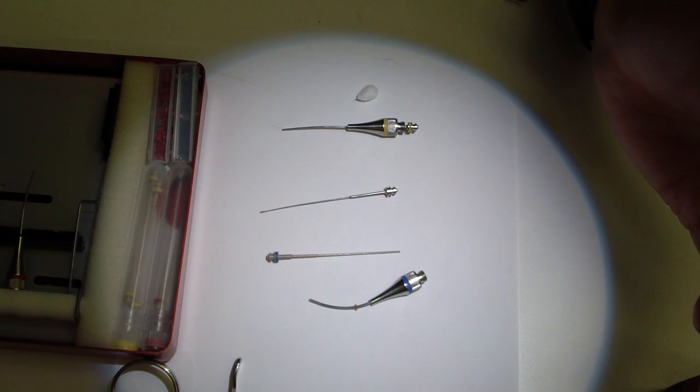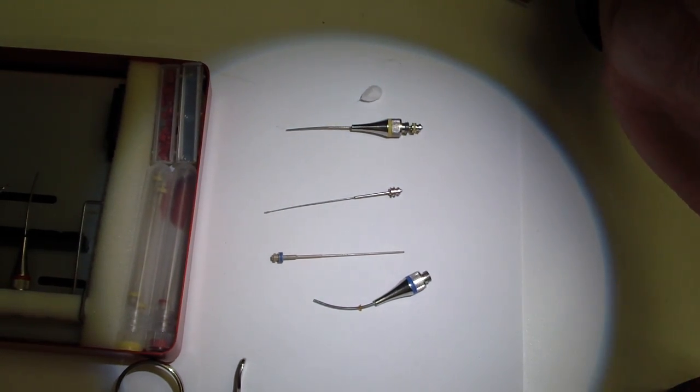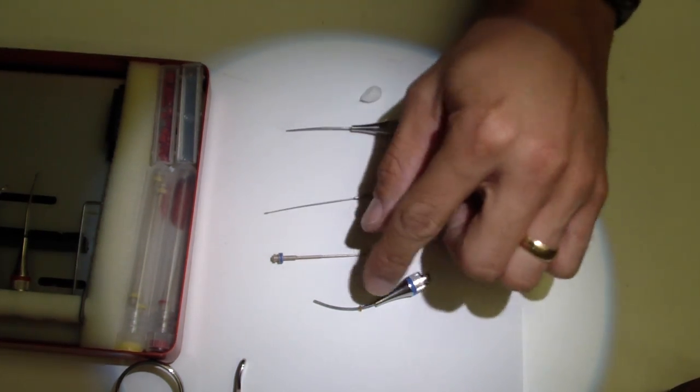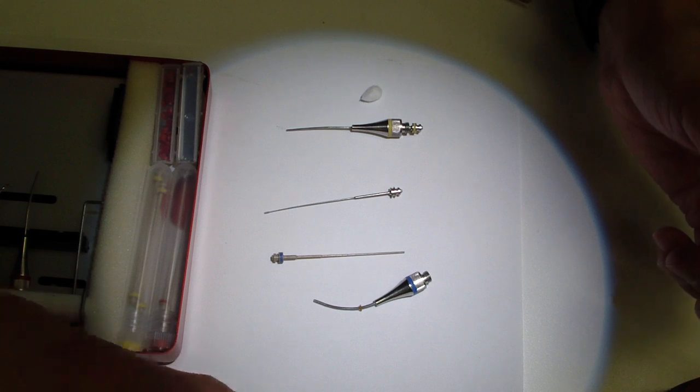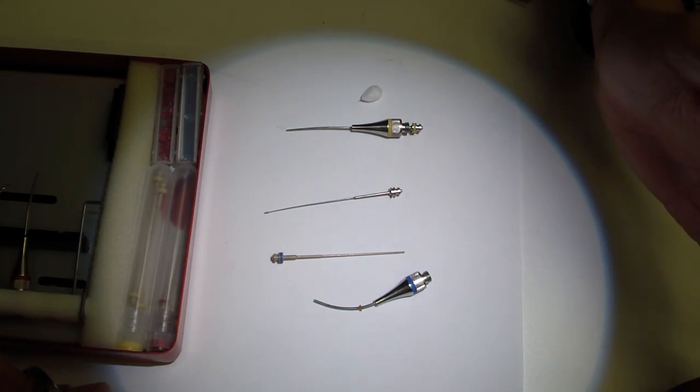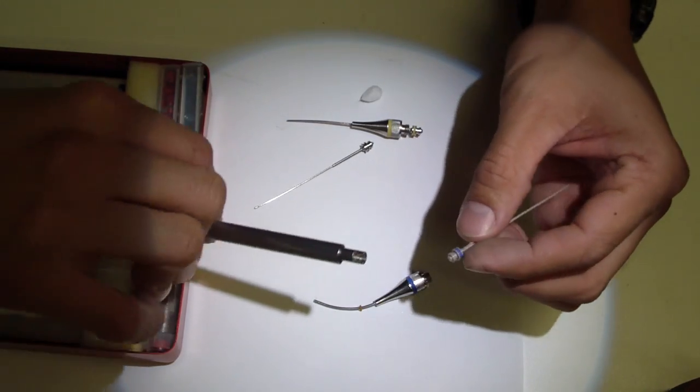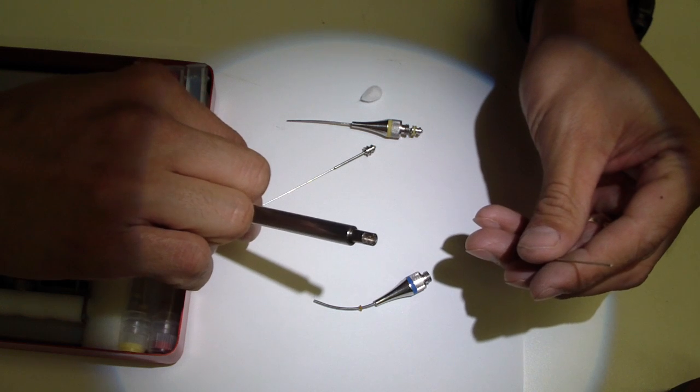The MTA sets. Manufacturer says it sets in four hours, but typically four hours and beyond, this stuff is cement, it's Portland cement. So these little micro-carriers get filled up and you're going to spend more time chair-side fiddling around if it's not cleaned properly after use. That is my statement for today, because I've been there and done that several times and it's frustrating.